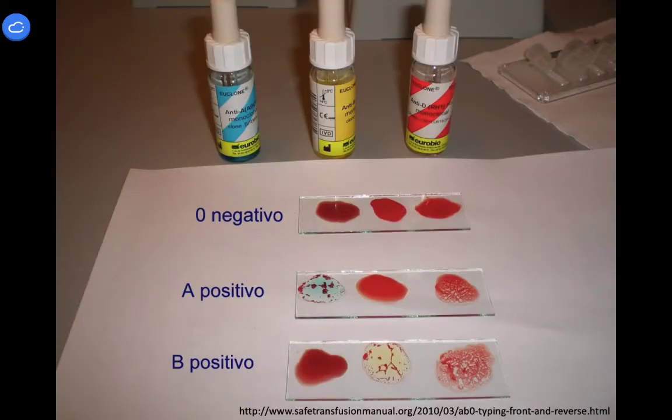This is just what it looks like when we actually do it on a slide. So the top slide is showing someone who's O negative, meaning none of the antibodies reacted with anything on the cells because the cells don't have any antigens to react to. Very homogeneous mixture, no clumping, no light parts, dark parts. The middle one would be our patient here. So you've got an A positive, you've got clumping because the anti-A reacted with the A cells. Then you have nothing happening for B, and then you have clumping for D. And notice that it's a little bit finer for anti-D, and we'll talk about why that's the case.